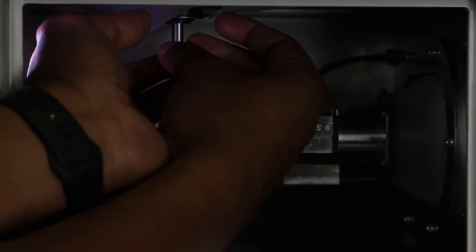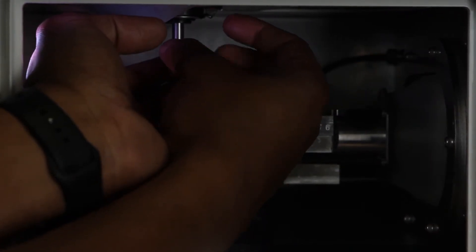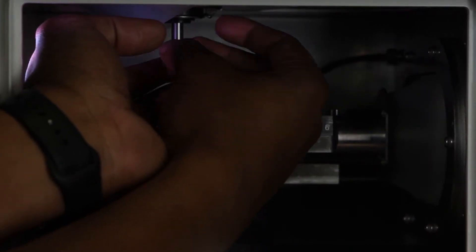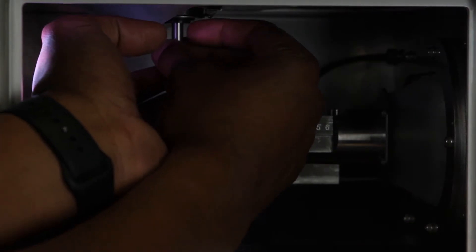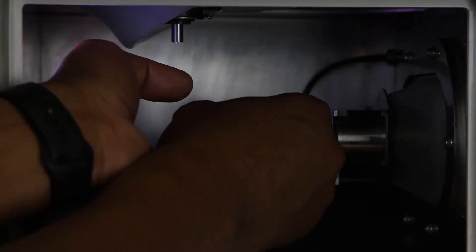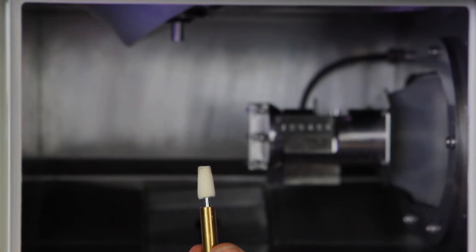Be sure to keep pressure on the bottom of the collet tap during this process. Once the collet is removed from the spindle, remove the collet tap and replacement jig from the collet.